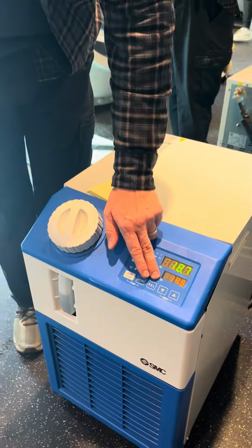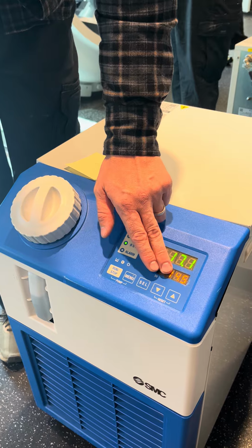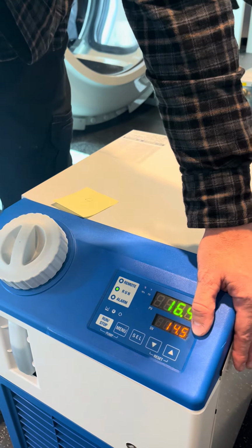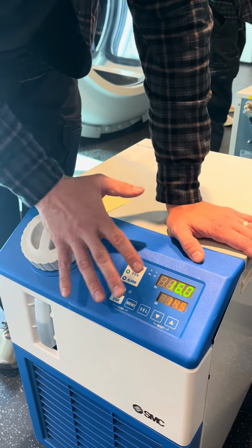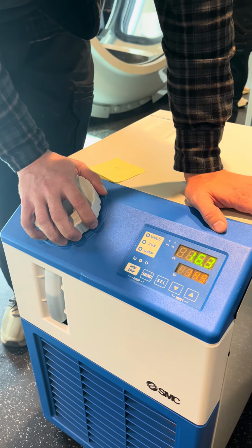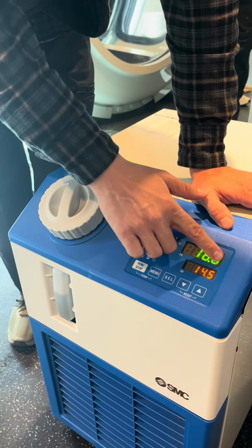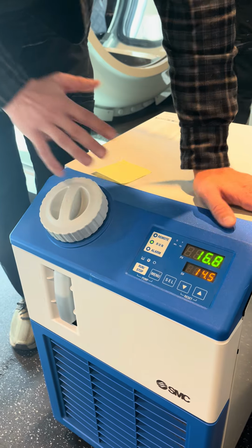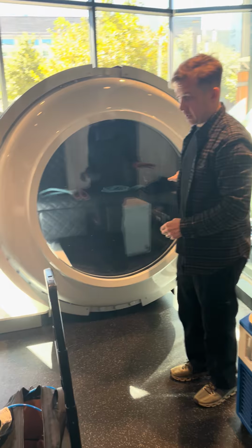This is your set value on the bottom. 14.5 is good. Condensation risk below 11.5 inside the chamber. So try to keep it at 14.5, 13.5, and then this value will eventually match your set value, and that will be the temperature of the water circulating in the chamber. Okay. Chamber switch stays on in the back.